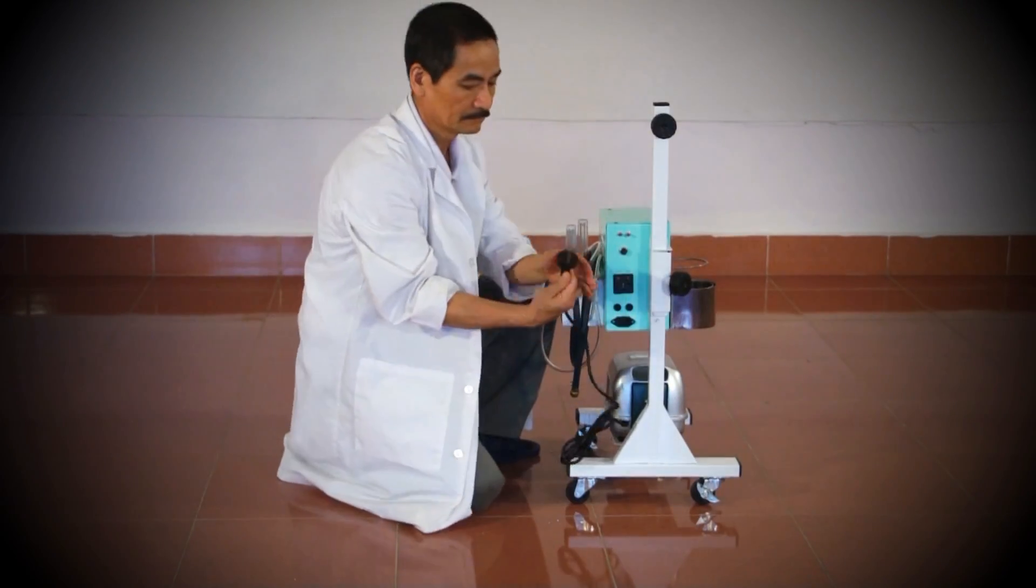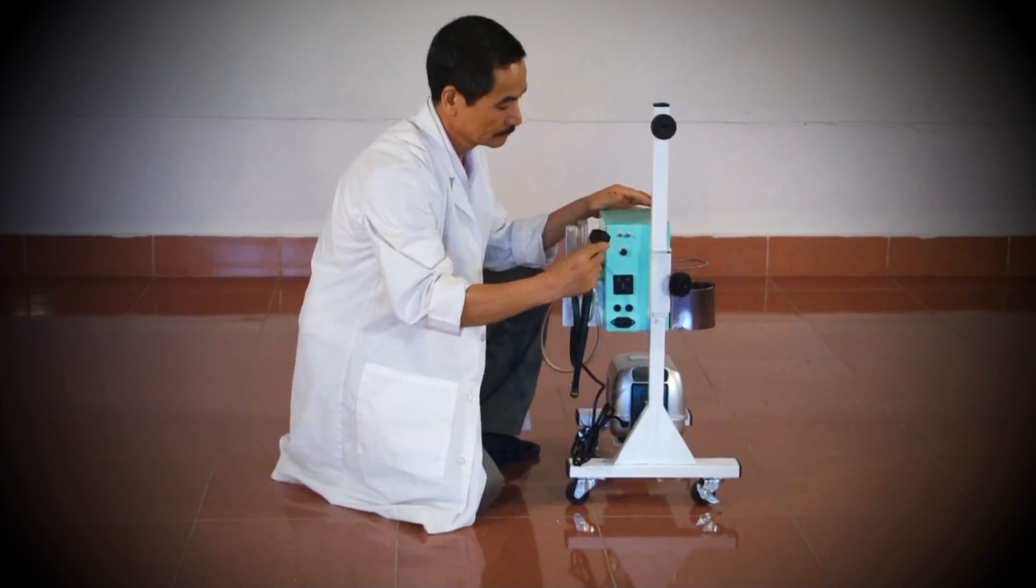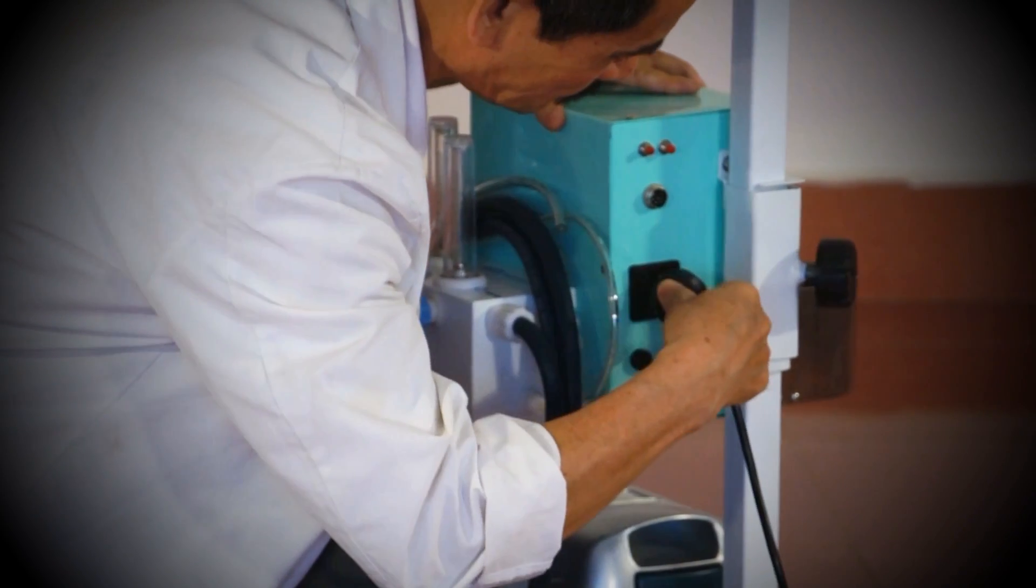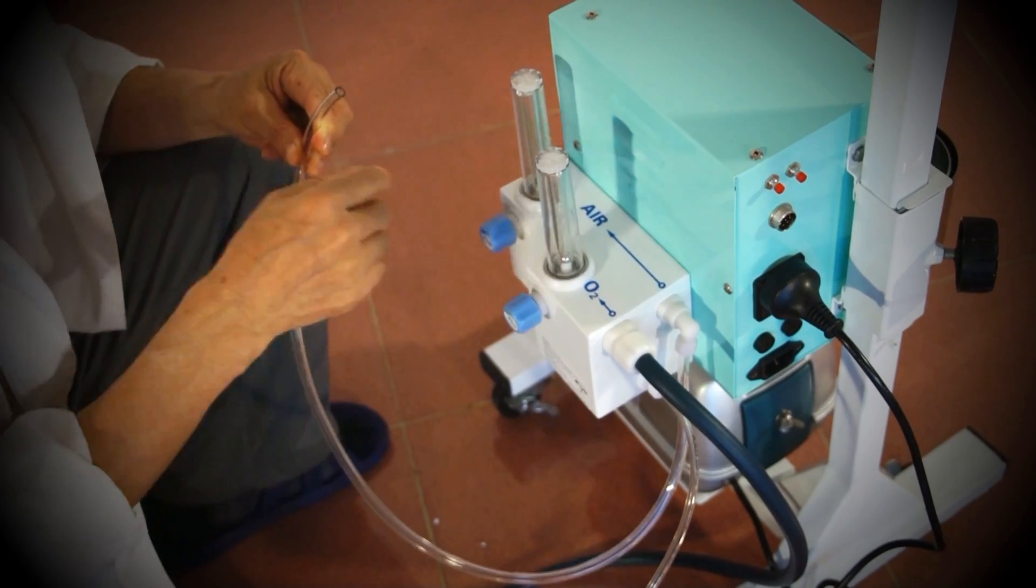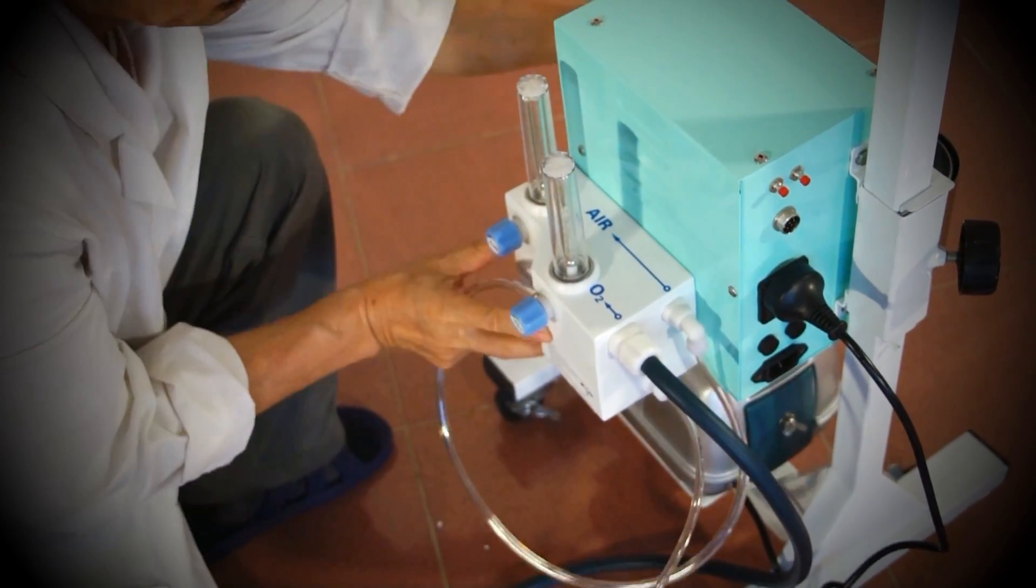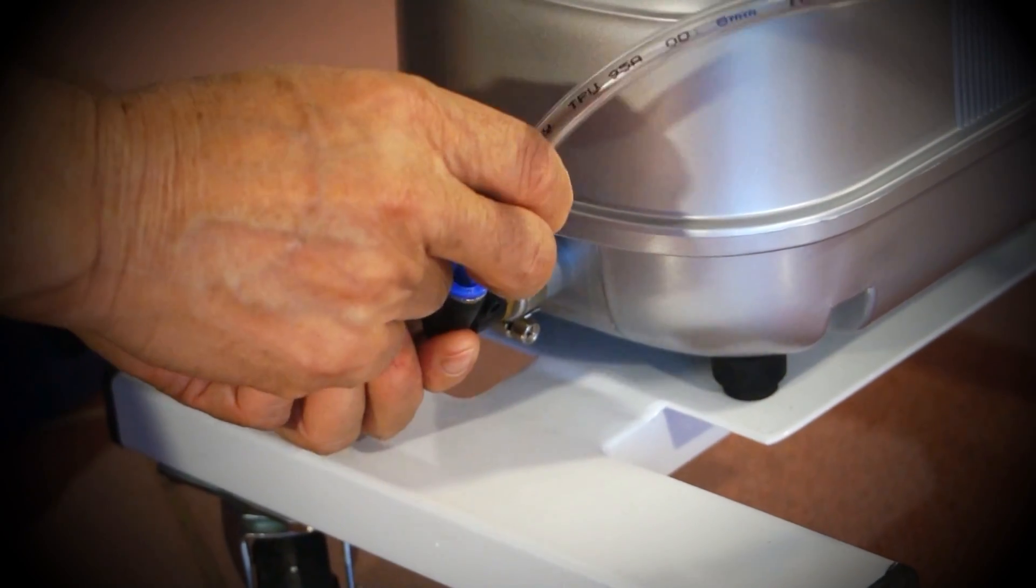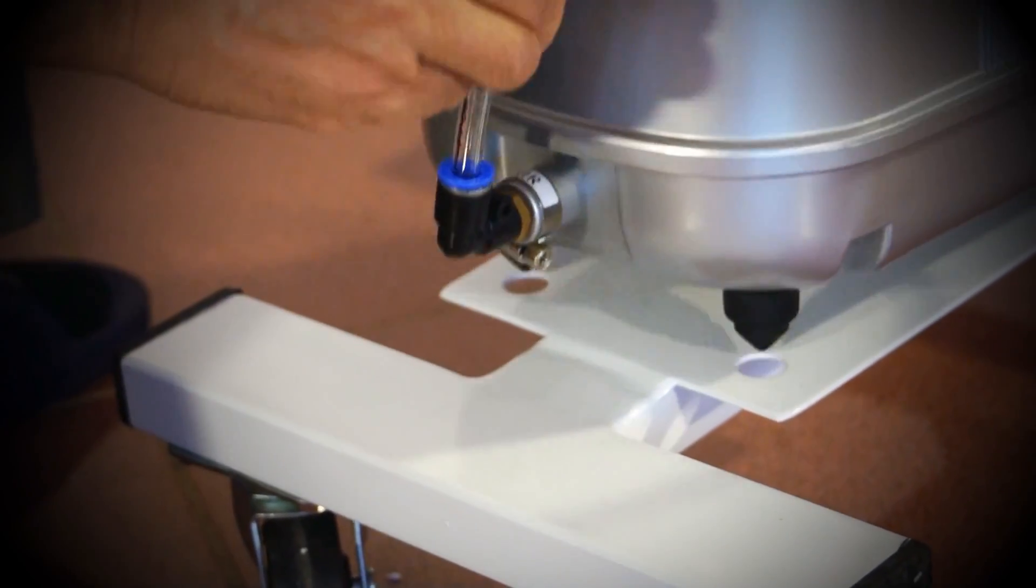Once the air compressor is back in place, connect the air compressor power cord to the socket on the control box. Then connect the air tube from the CPAP main unit to the air compressor. Pull gently on the air tube to ensure that it is firmly secured.